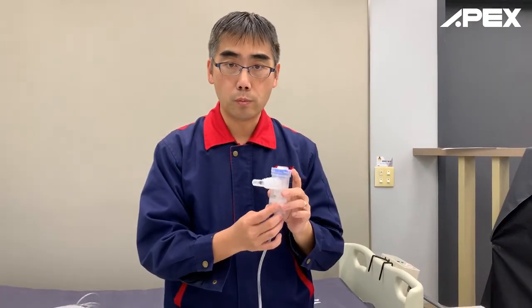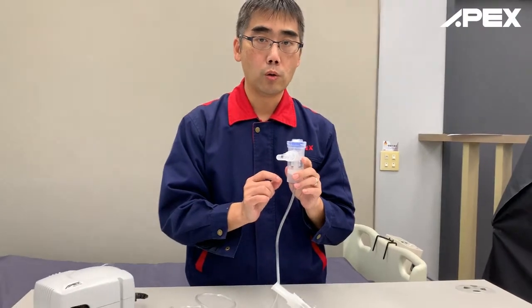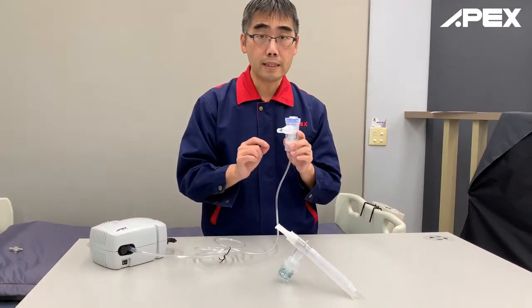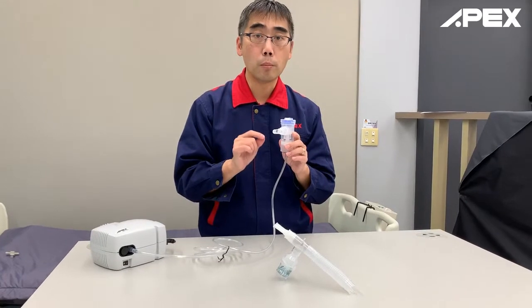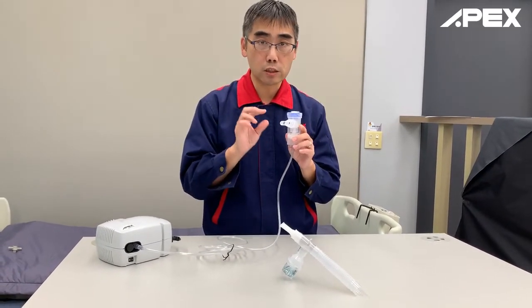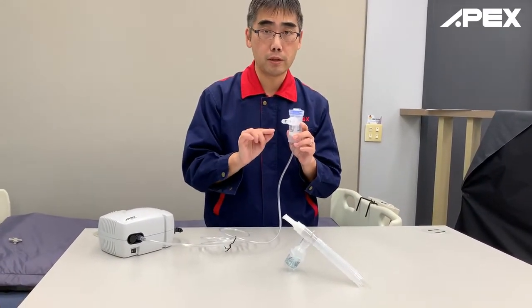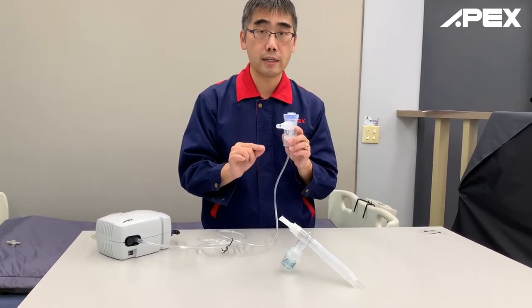One of the beauties of this product is it offers the world's finest particle size. The MMAD will be up to less than 1.22 microns — one of the smallest aerosol particle outputs you will find on the market.